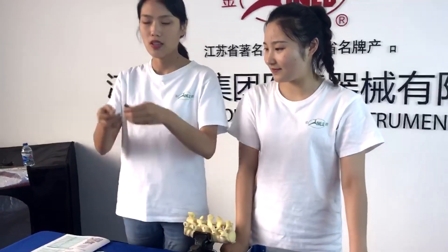Let me introduce the pedicle screws. This is our pedicle screw — it is double core and double thread design. This one is a polyaxial pedicle screw, and this one is a monoaxial pedicle screw.